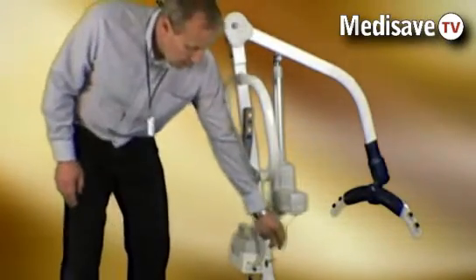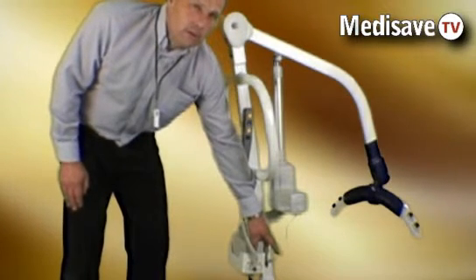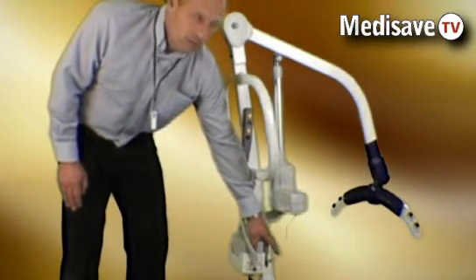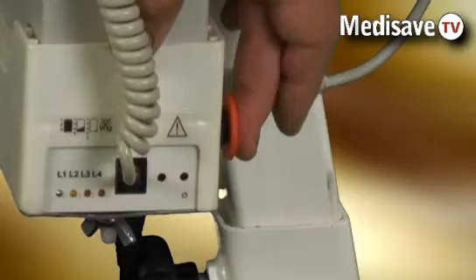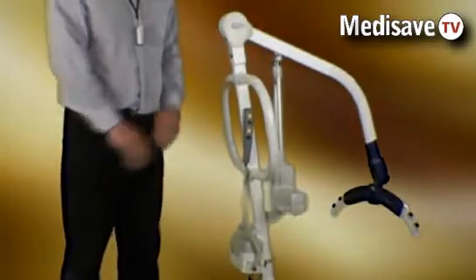On the front of the control box there is the emergency stop button, which can be pushed in and will cut the power in case of an emergency.